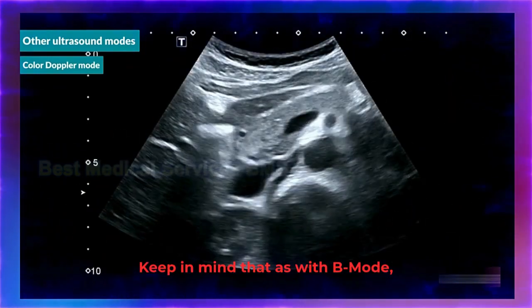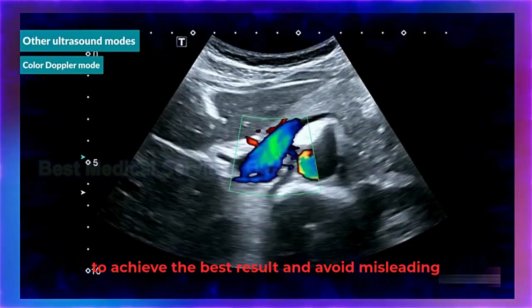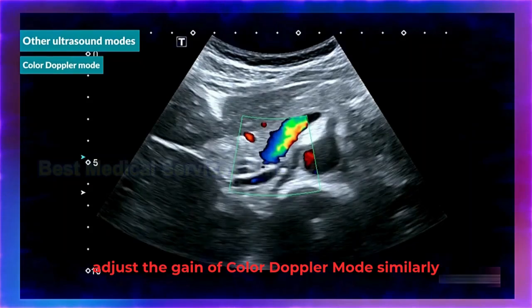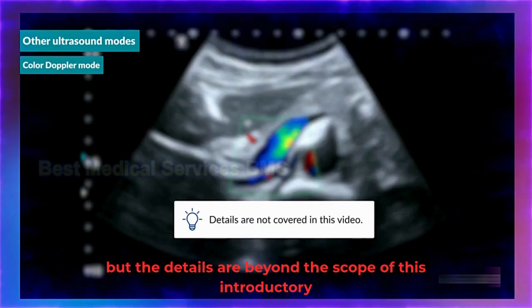Keep in mind that as with B mode, color Doppler mode has to be set up correctly to achieve the best result and avoid misleading findings. You can, for example, adjust the gain of color Doppler mode similarly to how you adjust B mode gain, but the details are beyond the scope of this introductory video.